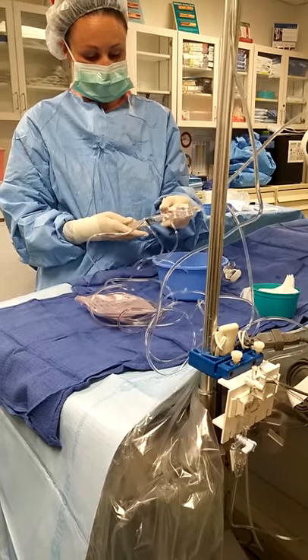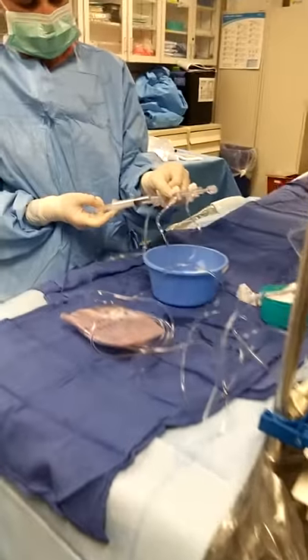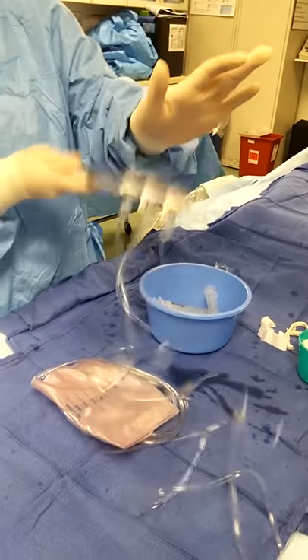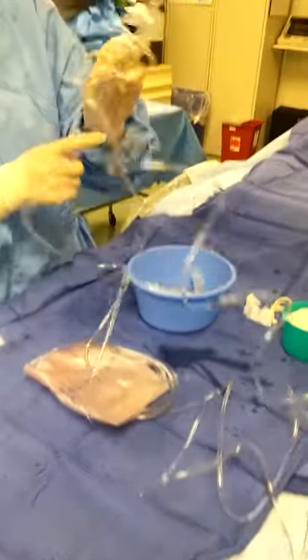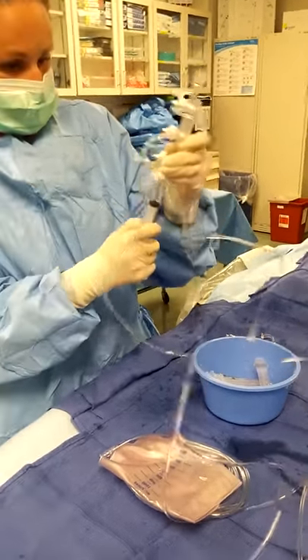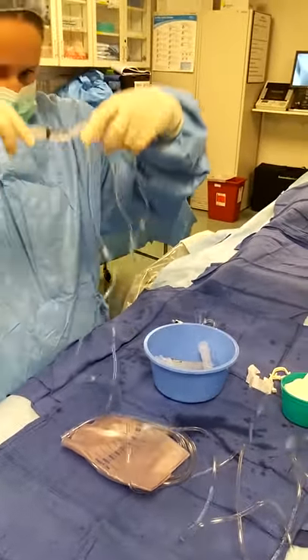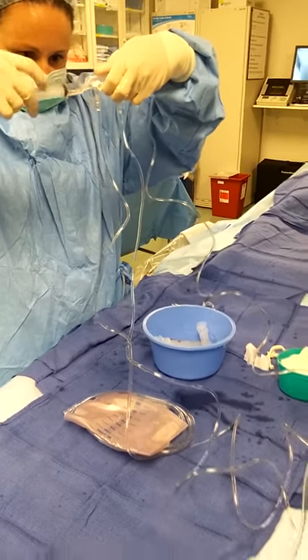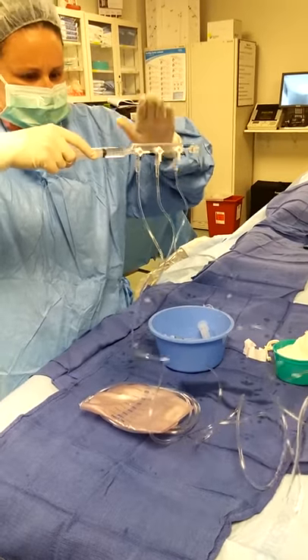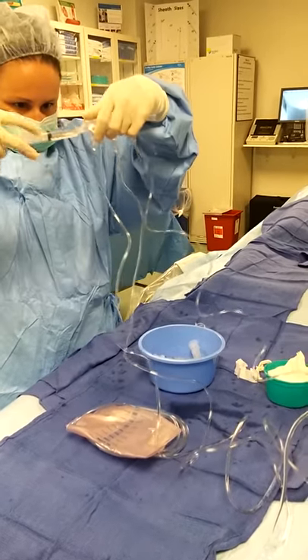Now I need to pull back my contrast. Air rises. Save every cc that you possibly can — you don't want to waste any of it. And then once I find that it's air-free, I'm going to send it back. Oh nope, there's a bubble. There's a little pesky thing. As I'm hitting, I'm drawing back at the same time. The two occur simultaneously.